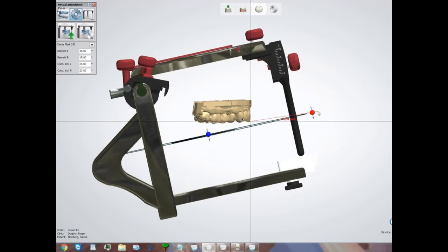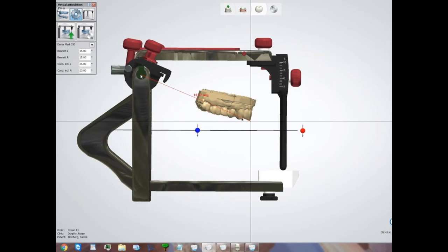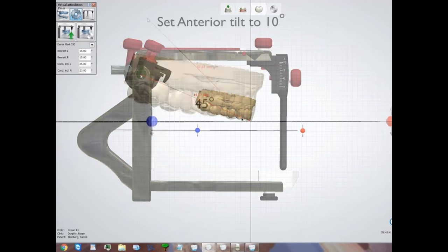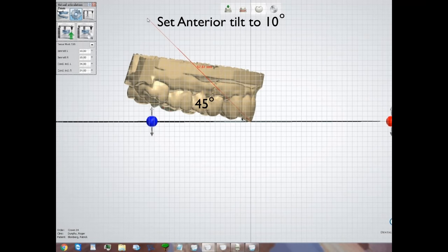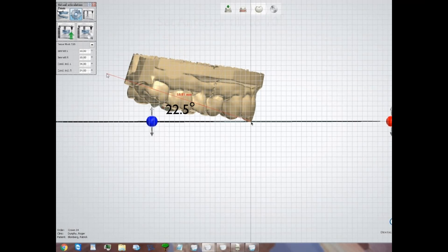Now we've accomplished two things: it's in the center at 54 millimeters from the top bow, and about 100 millimeters from the condyles forward. Now we need to put this at a 10-degree down tilt. You grab that red ball, rock the articulator back, then bring it forward — that gives about a 10-degree down tilt. To verify 10 degrees precisely, I drew a line through the first square at 45 degrees, then halfway at 22.5 degrees, then used a protractor: counting eight blocks over at that intersection gives exactly 10 degrees.